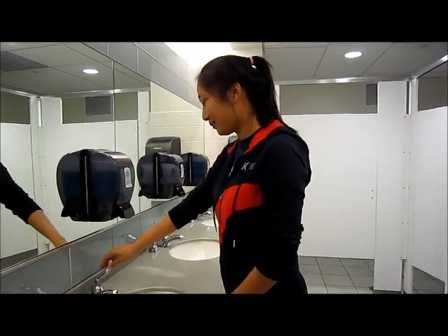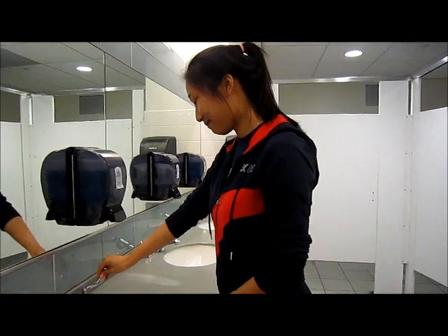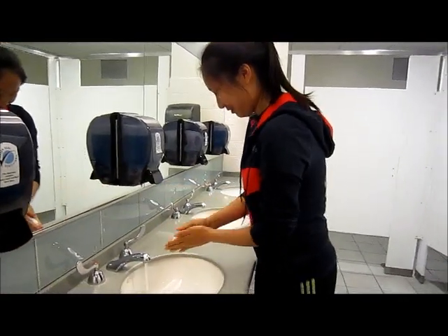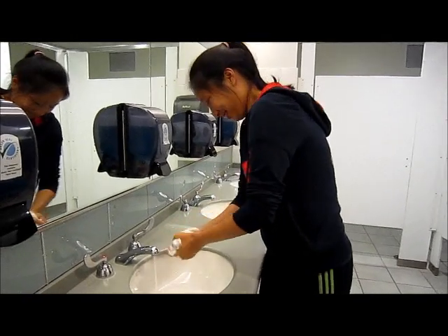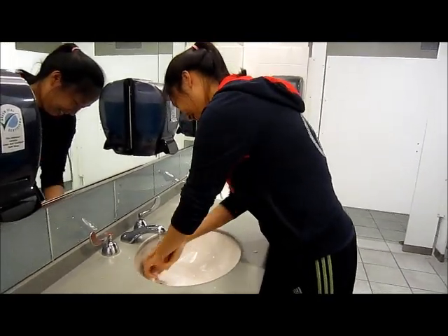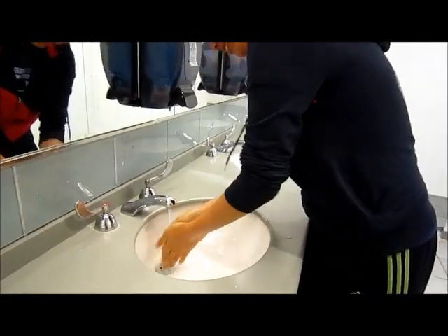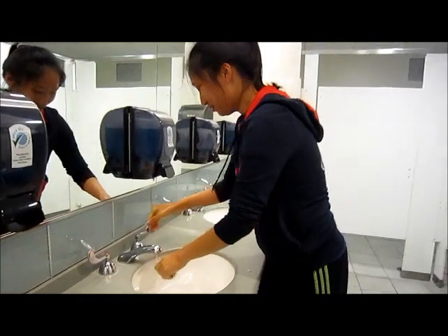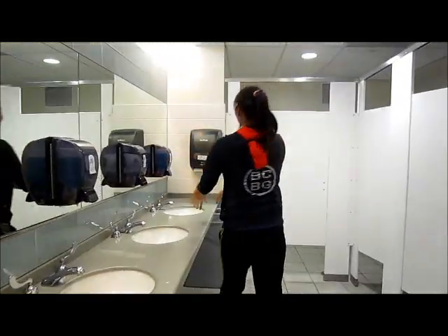Step 1: Wash your hands with soap and water before pricking your finger. Residues from liquid lotion may affect the test. If you're somewhere without a sink, make sure you bring rubbing alcohol to clean your fingers. Dry your hands, and afterwards warm your hands to increase blood circulation — this will help get enough blood for the glucose meter.